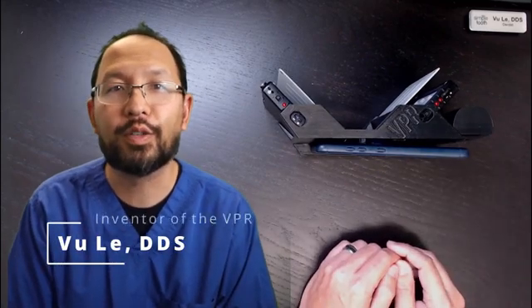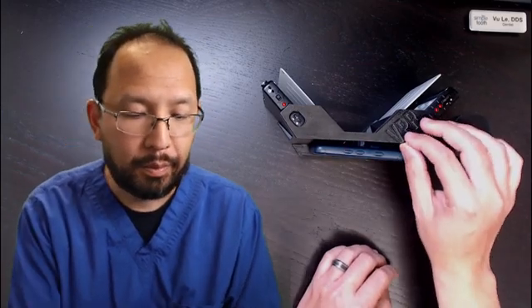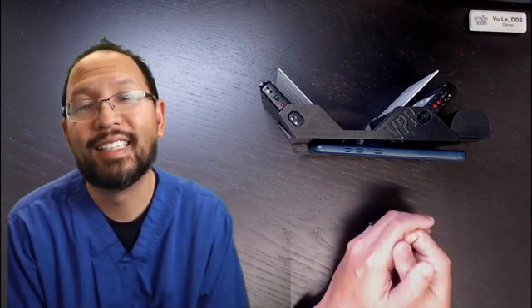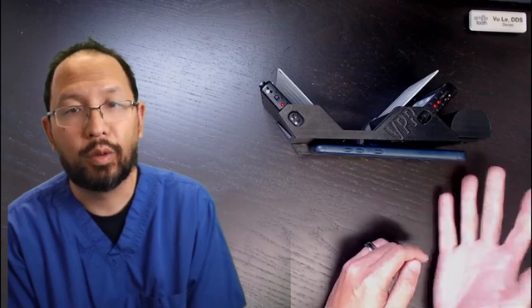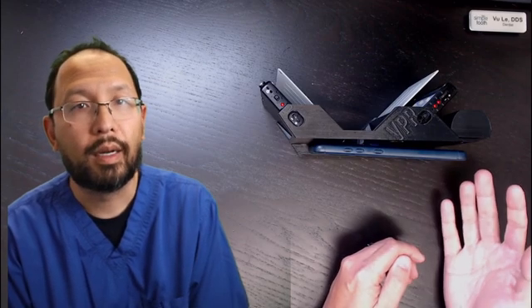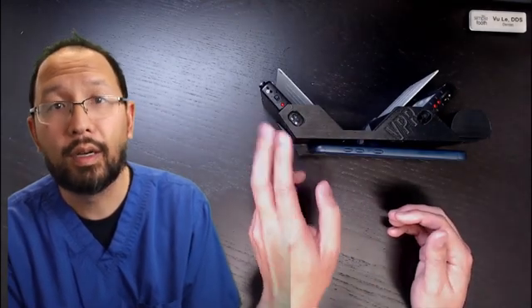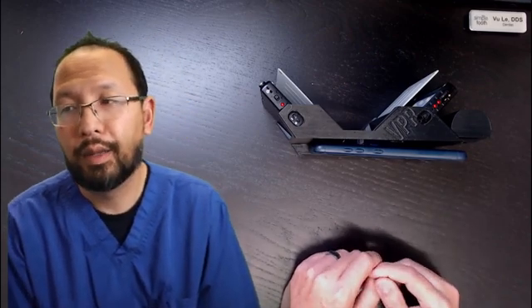I have the VPR 400 here. Thanks so much for supporting me and for supporting this product — it's been a labor of love. I'm expecting my second patent to be issued for it any day now. It's been a great success, even more successful than I thought, so successful we're having trouble keeping it in stock. My goal over the weekend was to design something new — another option I can maintain inventory on a little easier, and something to meet some unfulfilled needs I have with the 400. Don't get me wrong, the 400 is a great camera — it'll work well for almost all dentists and staff almost all the time. Where it does fall short sometimes is runtime; I think for longer procedures the battery life could be better.